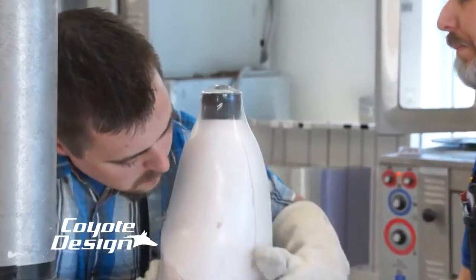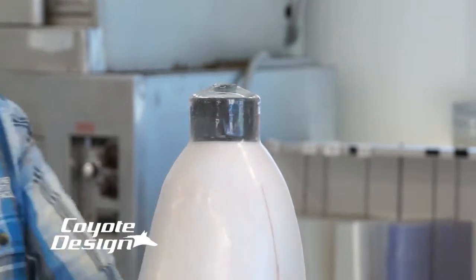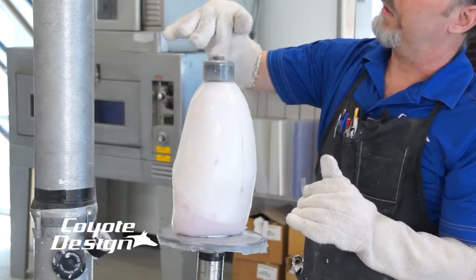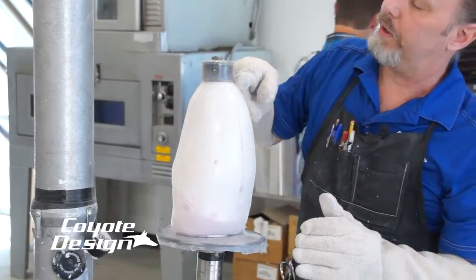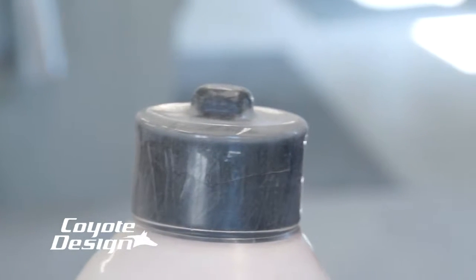It's looking nice. Watch your belly. So even though it's pulling right here, then it seals, and it leaves a little bit of a pucker here — it doesn't matter. It's drawing around here is what we're concerned with. Getting a nice tight seal. And if you think you need to, you can take your nylon and coax it in a little bit, just to make sure that you got that in there real nice without over-thinning your plastic. This drew in really nice.